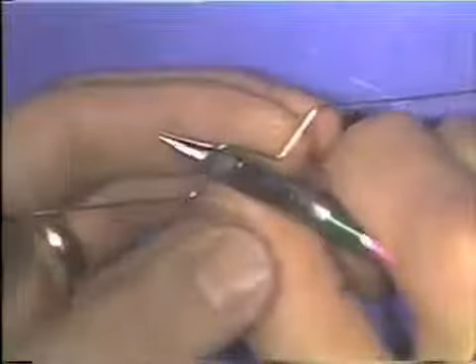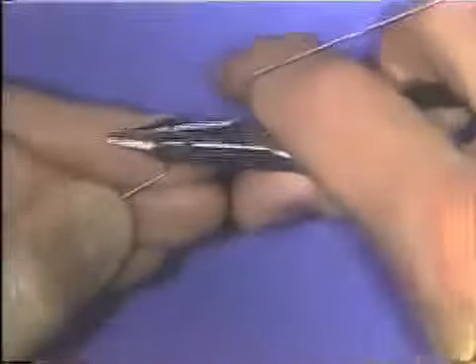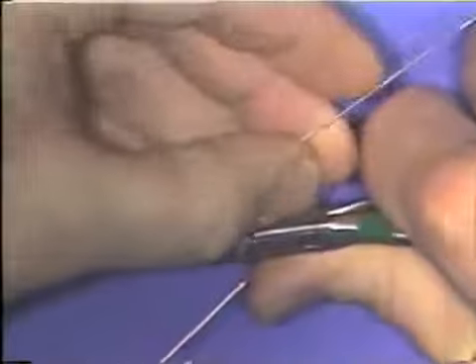You know that the bend you just put in the wire is the one that caused the problem. By removing some of that bend, the first portion of the wire becomes flat on the table again. You try to flatten the wire again by placing the beaks of the plier back on the wire and bending it a smaller amount.